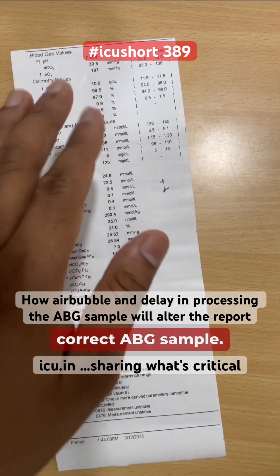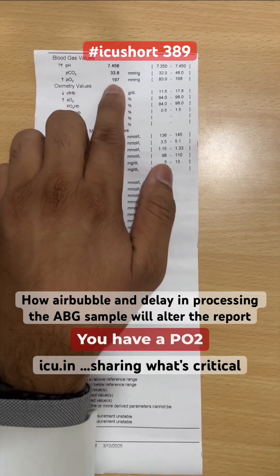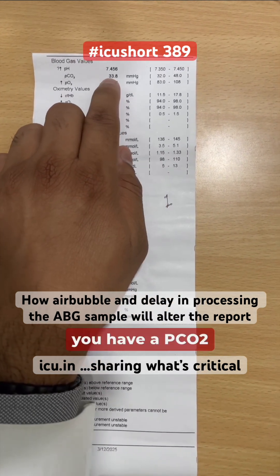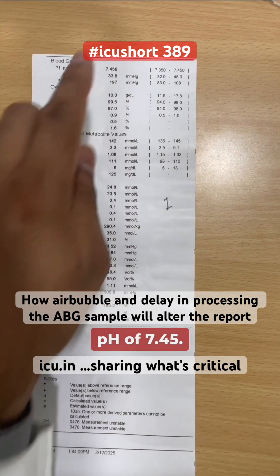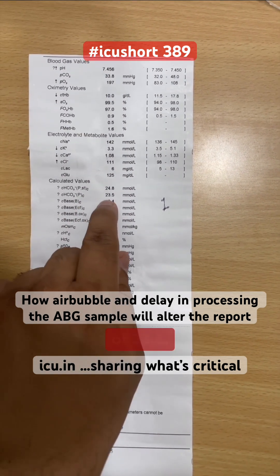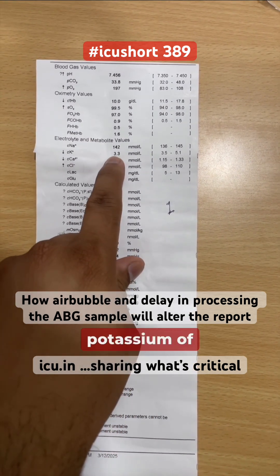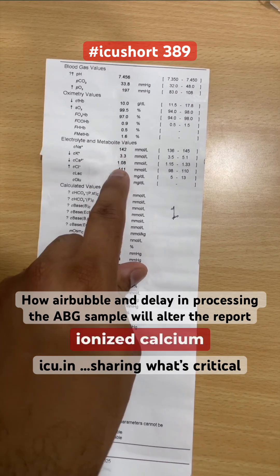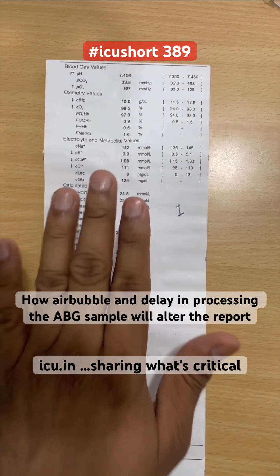This is the correct ABG sample and this is its correct report. You have a PO2 of 197, PCO2 of 33.8, pH of 7.45, bicarbonate of 23.5, potassium of 3.3, ionized calcium of 1.08, and lactate of 6.